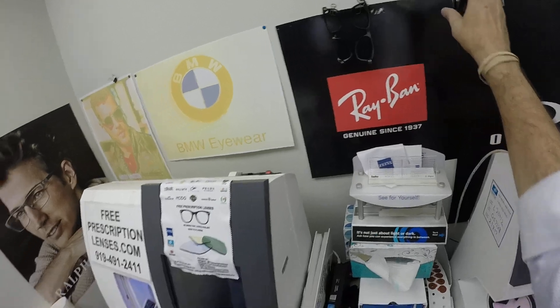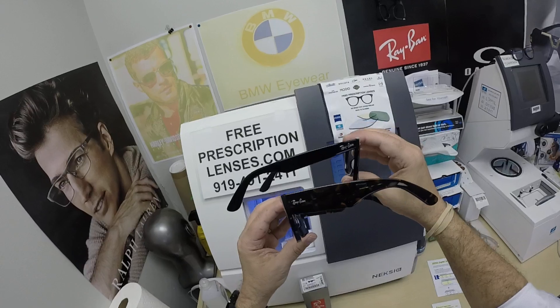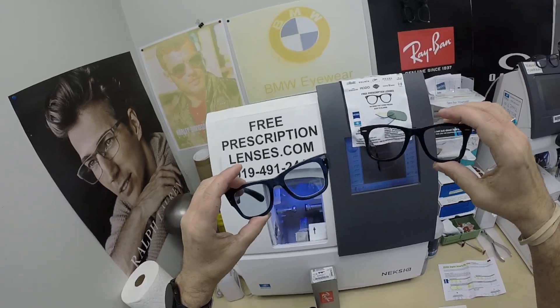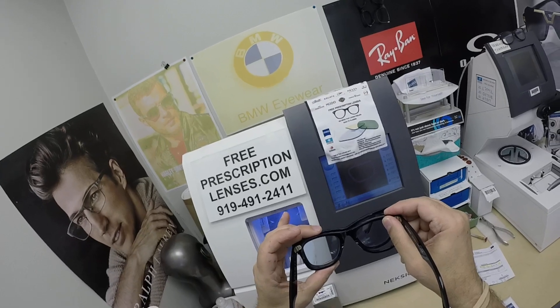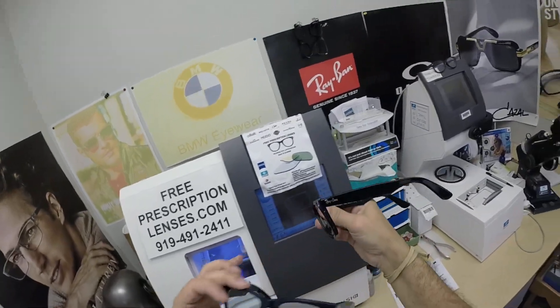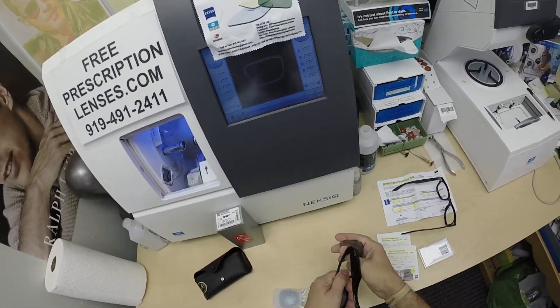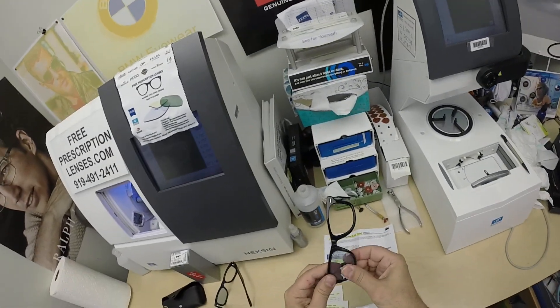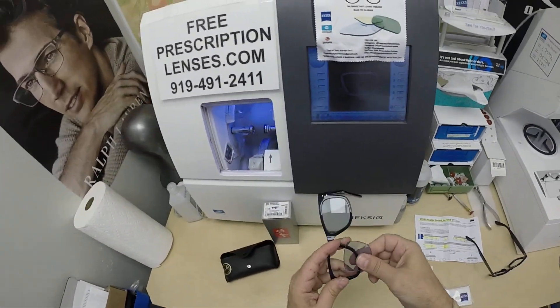This is the original Wayfarer — you can see the difference, same front. I thought I'd see if the lenses would fit, and we're going to do that in this video. But there's the typical temple and the Mega — the Megalodon. Let's pop this lens out and see if it's going to fit. No, it won't. So I'll have to put his back in.